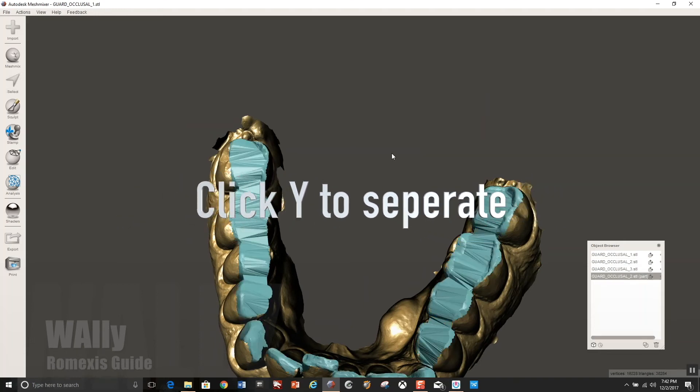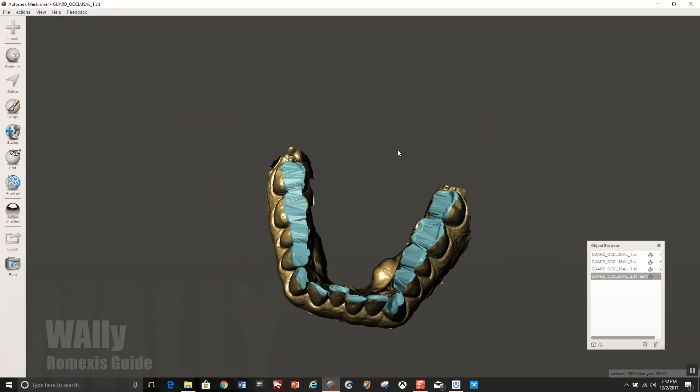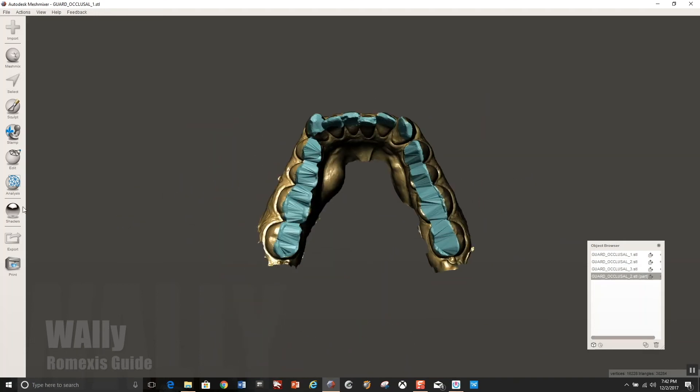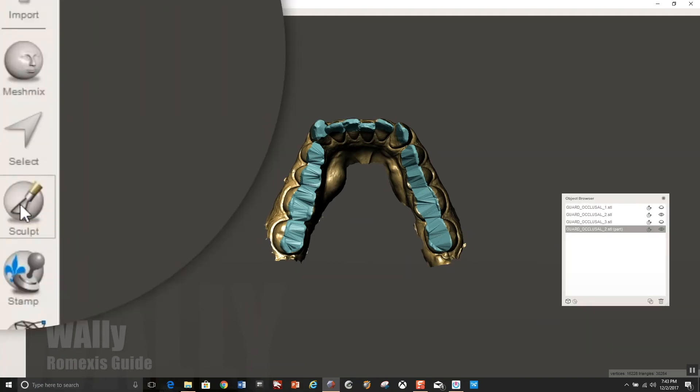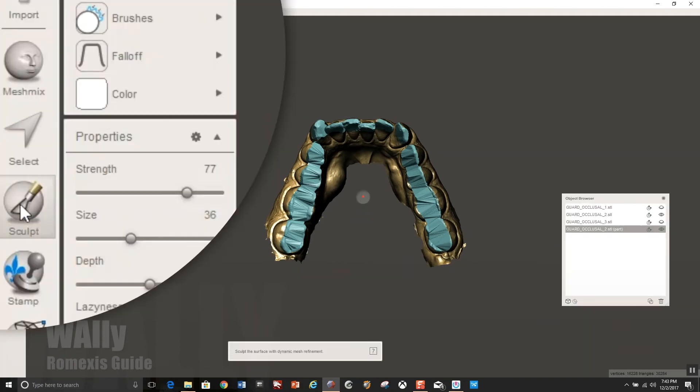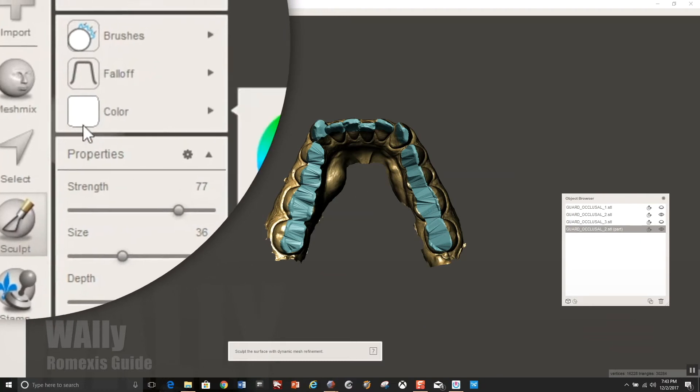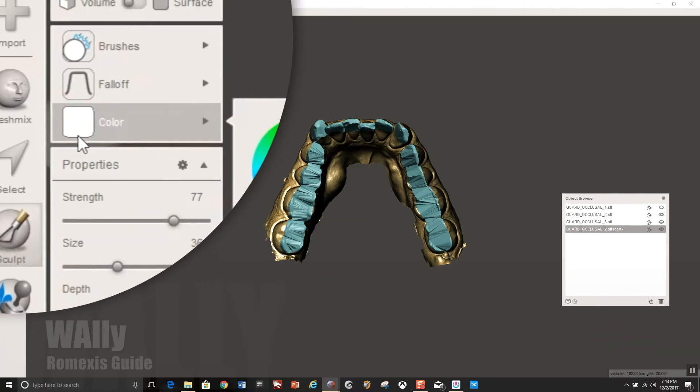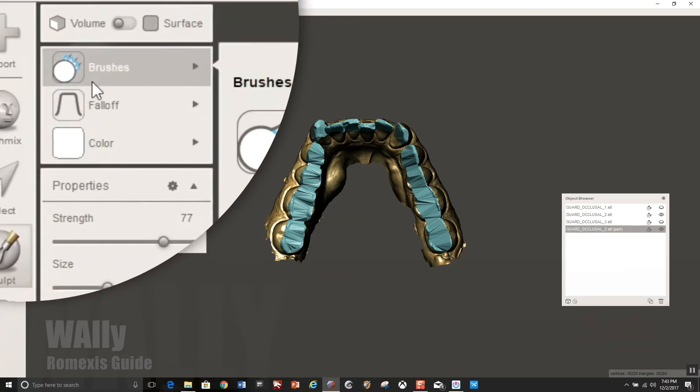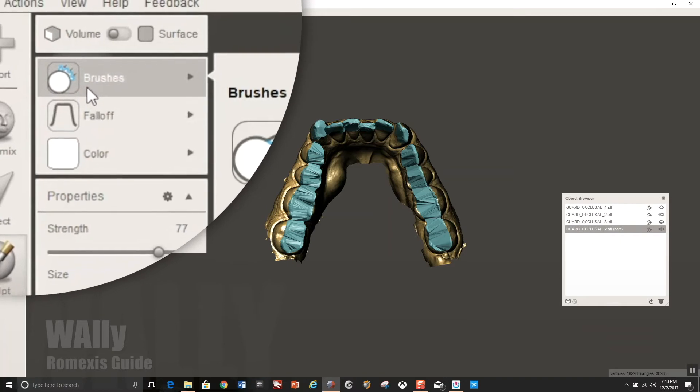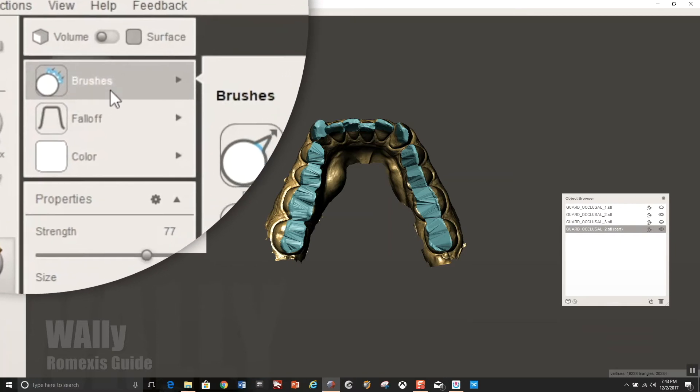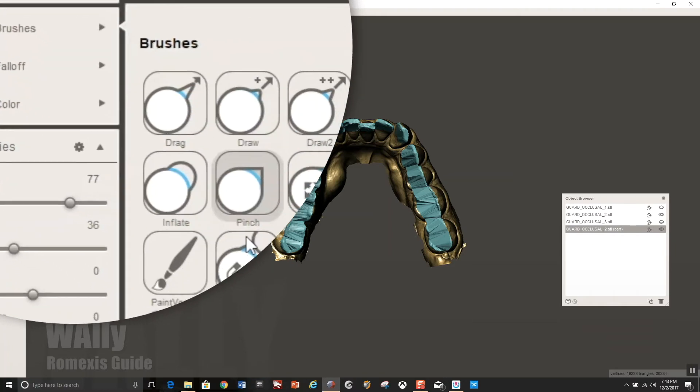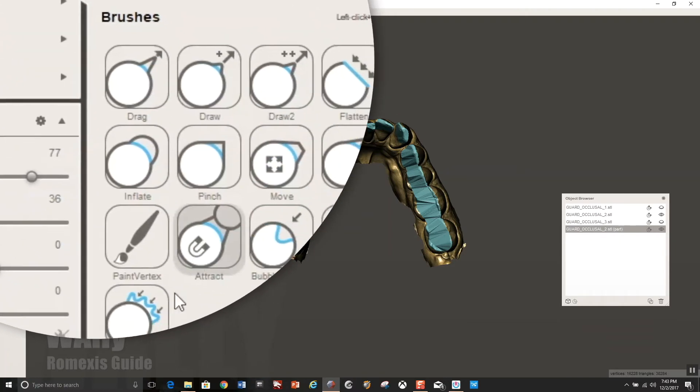Okay. So now you're going to extract all that by hitting Y and it'll create almost a separate model, a separate STL file. And at this point you don't really need the lower anymore. So I'll probably go ahead and delete that. But before I do, I'm going to smooth the new render that we just created using probably robust smooth.